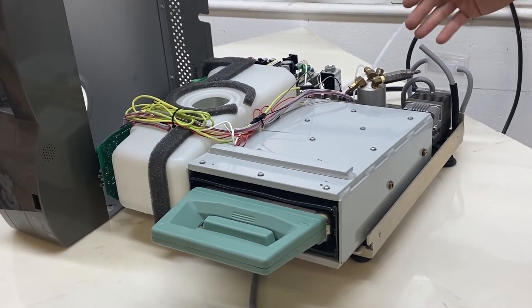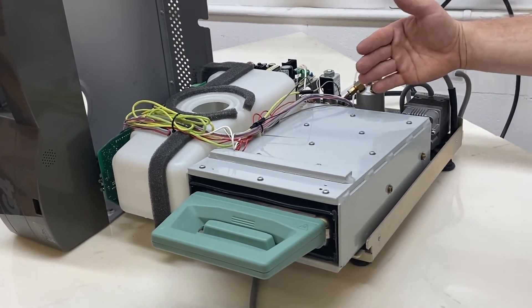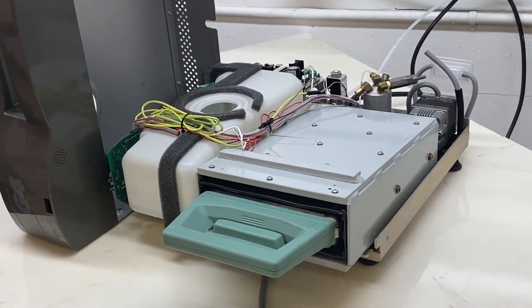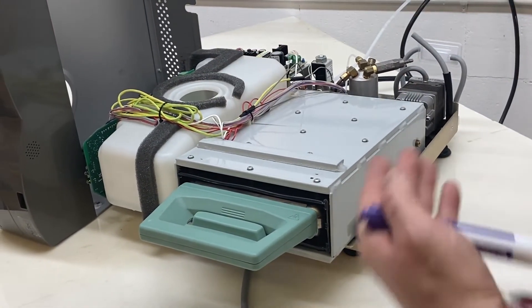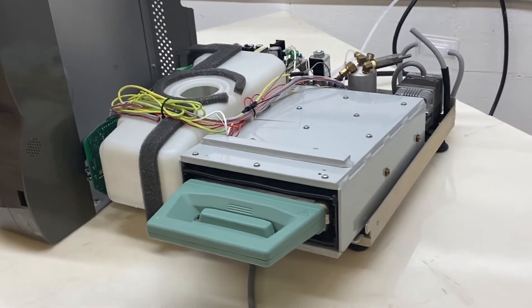So the first thing I would do when you get Cycle Fault G419 is pull the cassette out, empty all the instruments out, fill the reservoir full of water, put the cassette back in, and start another cycle.